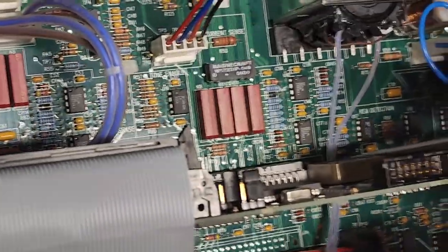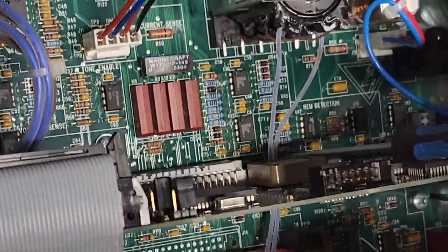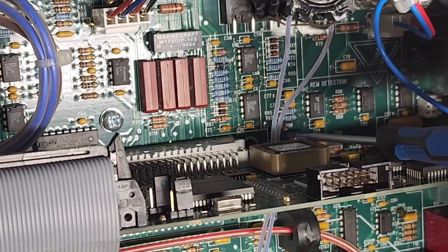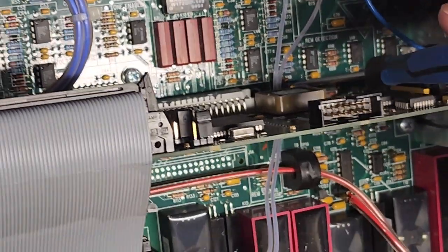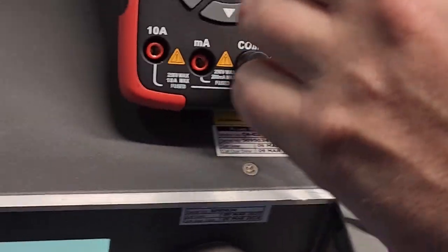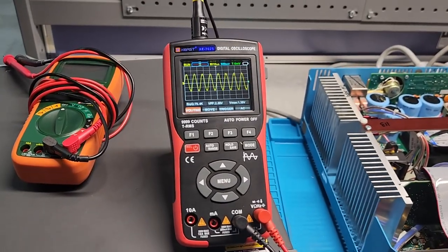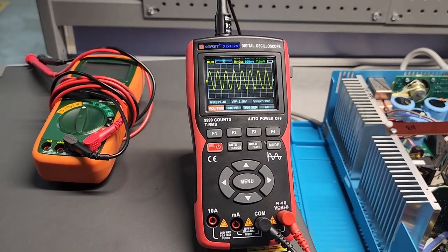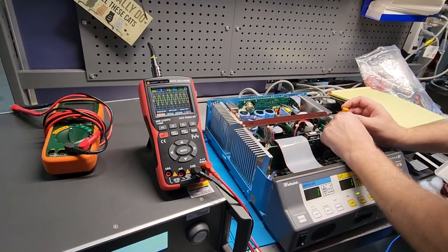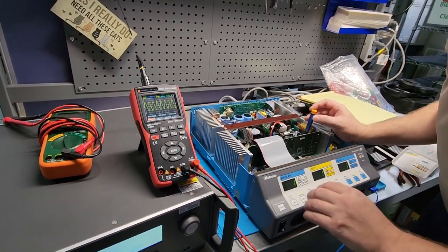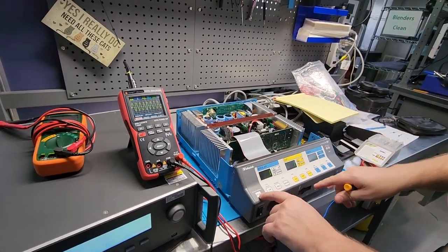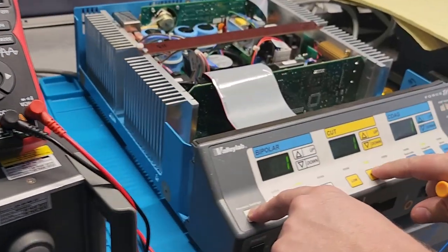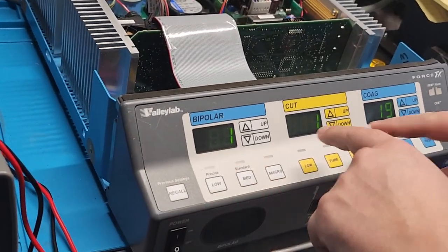Now mind you, we don't want to press down on the potentiometer because that is going to change the value. So I'm just going to set it here really lightly. And let's come back to our oscilloscope. And you can see that as I touch this screw, you can see how the amplitude of the waveform is changing. And that is generally a no-go, okay? So we're going to press recall, pure, desiccate.